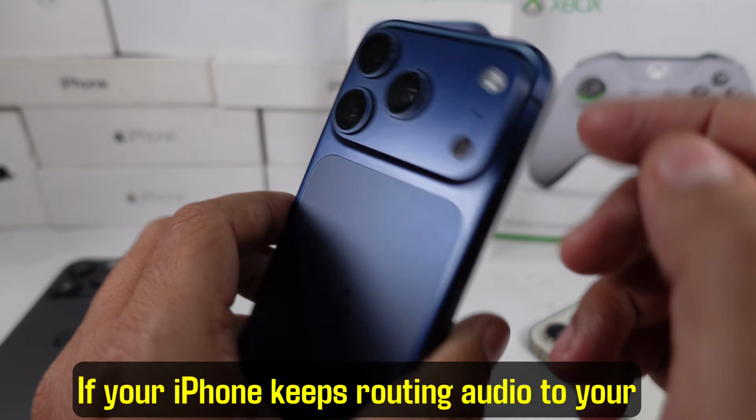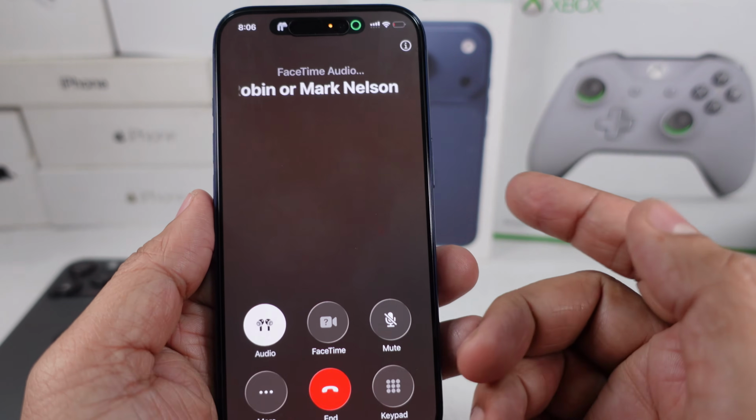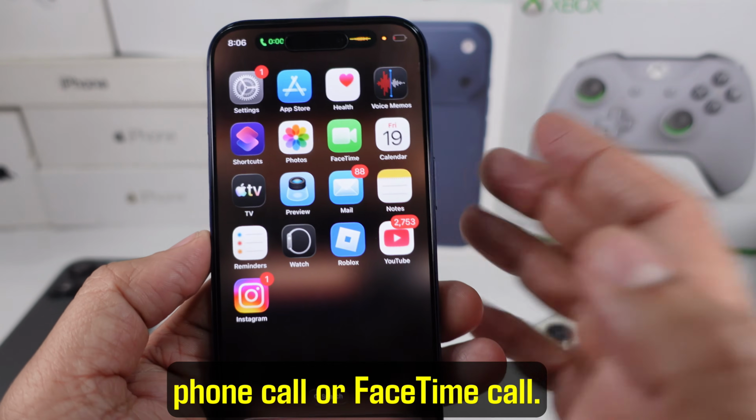If your iPhone keeps routing audio to your hearing aids and you want to switch back to the speaker right here, I'm going to break this down and help you step by step. First, let us talk about switching during a phone call or FaceTime call.